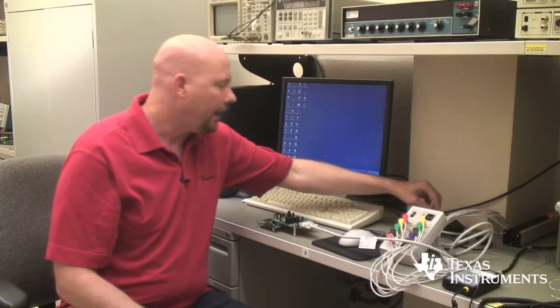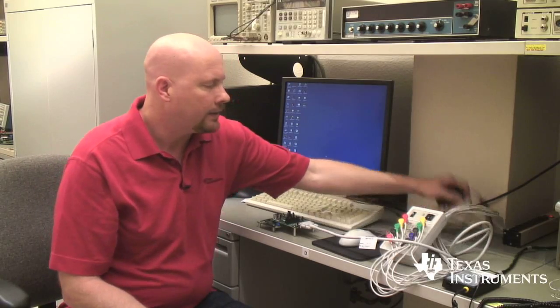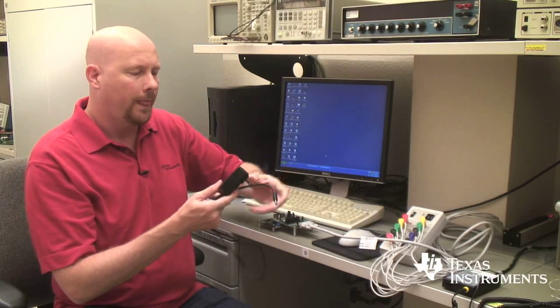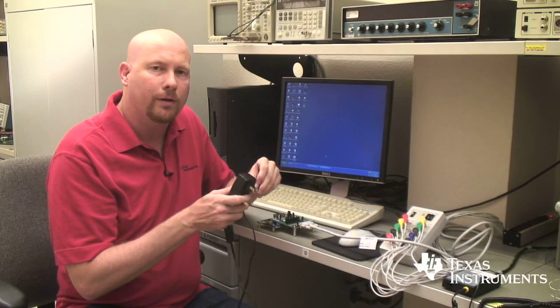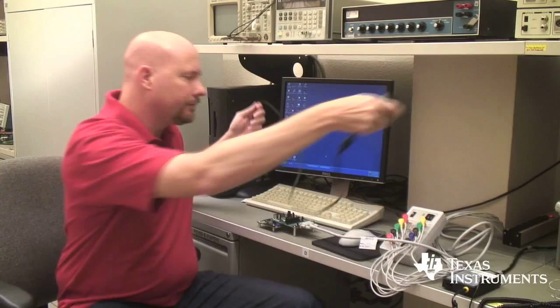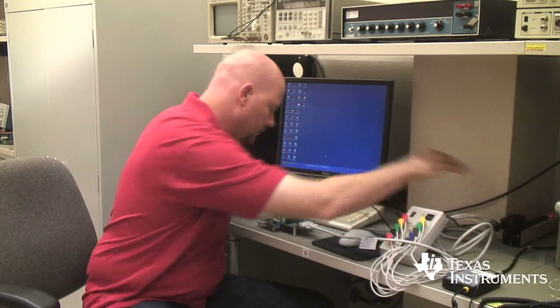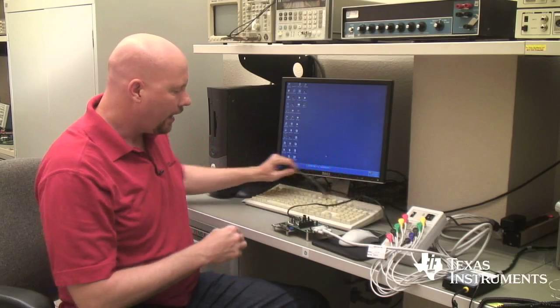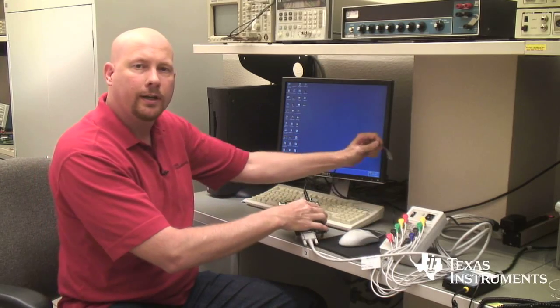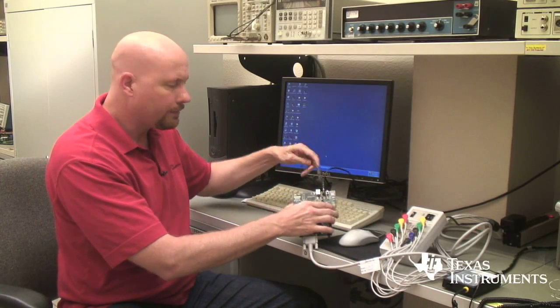Now with the PDK comes a six volt power adapter and you'll want to either use this adapter or a six volt battery pack to power up the interface board. The MMB0 interface board connects up to the computer through a USB cable.